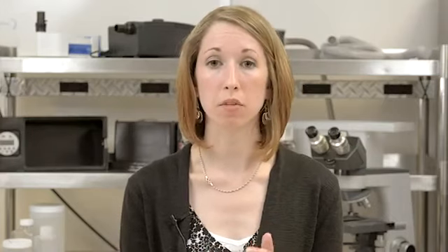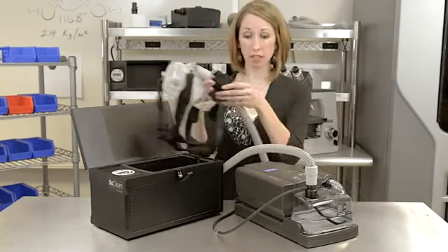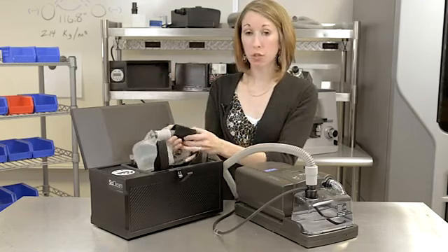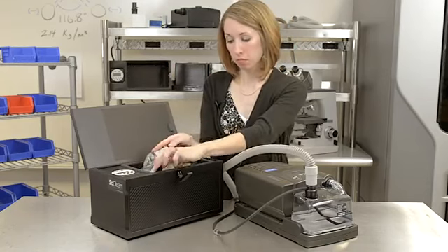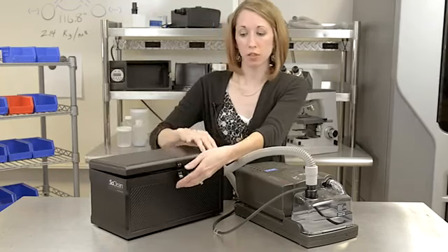Let's follow the process to see just how your CPAP equipment gets sanitized without any disassembling. After the easy initial setup, simply place your mask while still attached to your hose into the SoClean chamber. Close the lid and secure the latch.